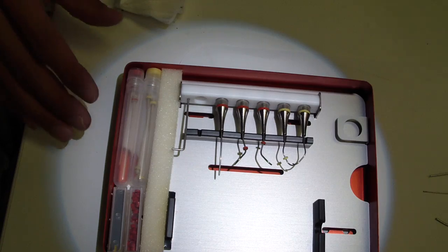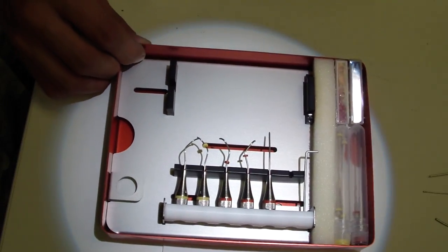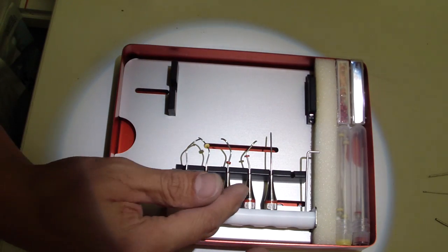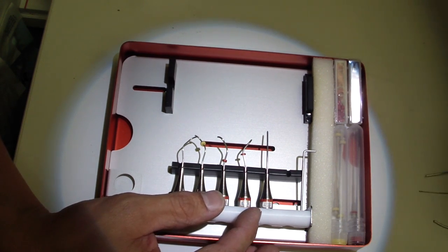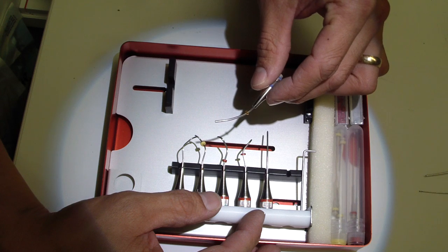Here are the contents. We have a number of different tips, different tip sizes, different styles. These are for apical surgeries. Yellow is fine, red is moderate, and then there's a big Bertha version, the blue.